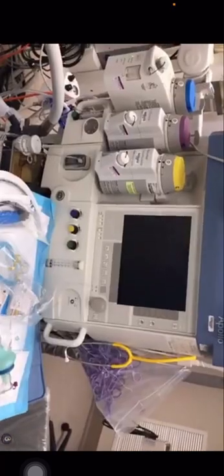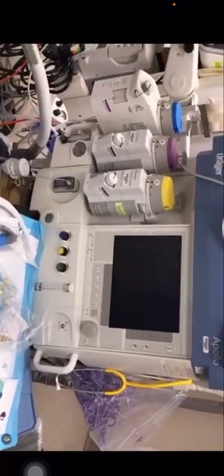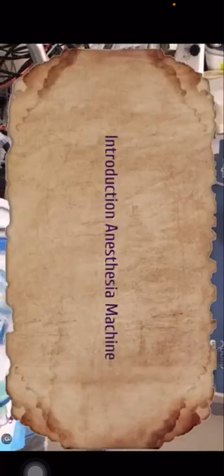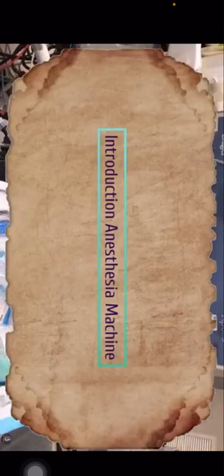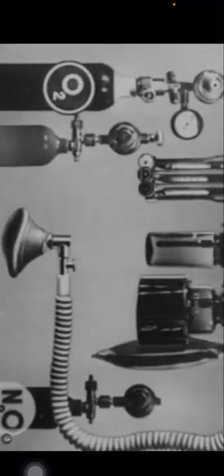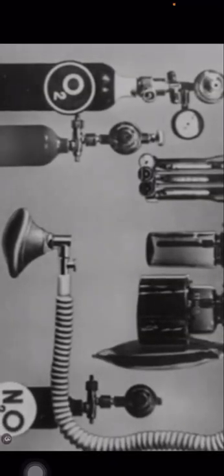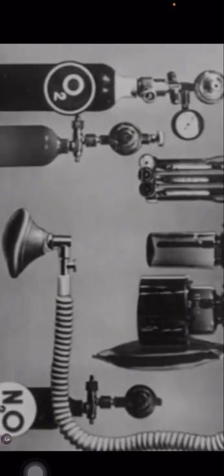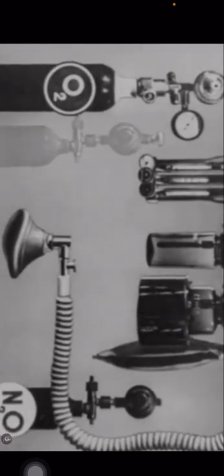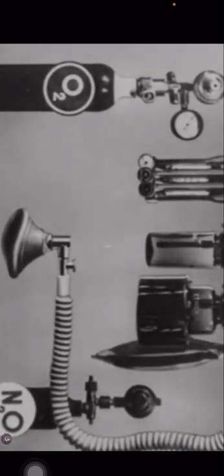In this medical equipment series video, we will look at the anesthesia machine. In this part, we will look into an introduction to the anesthesia machine, what is the anesthesia machine, and types of anesthesia machines. Let's begin with the introduction.